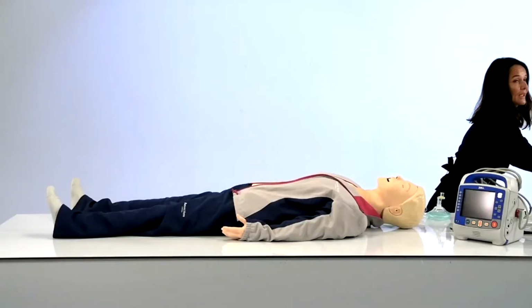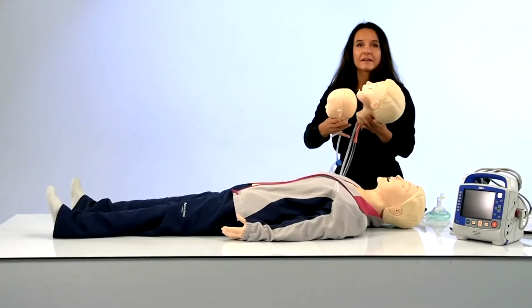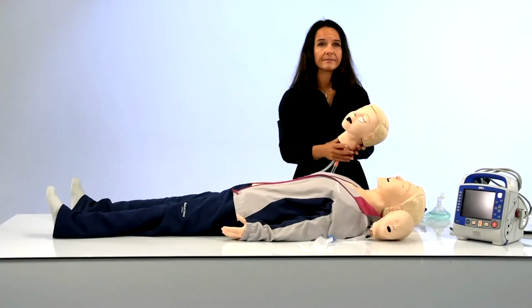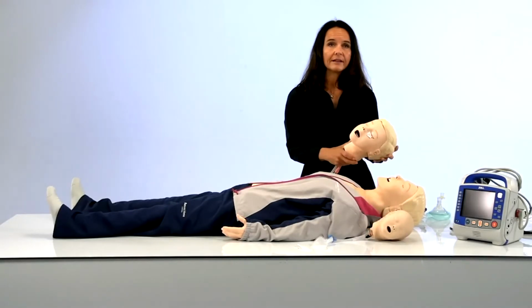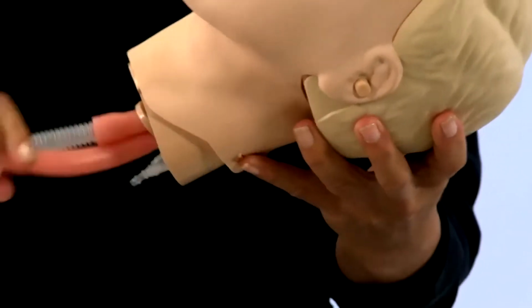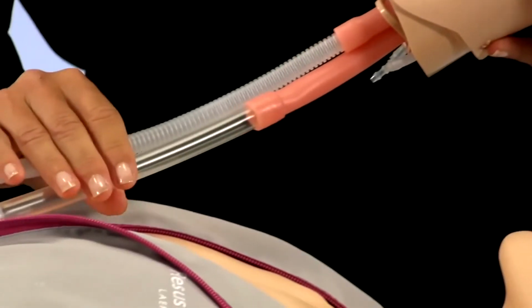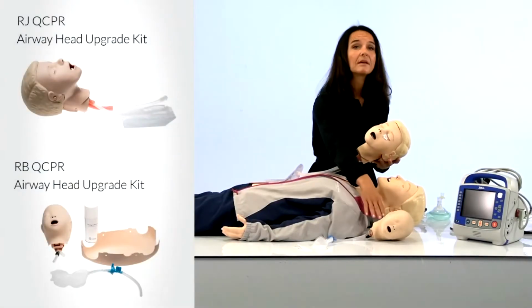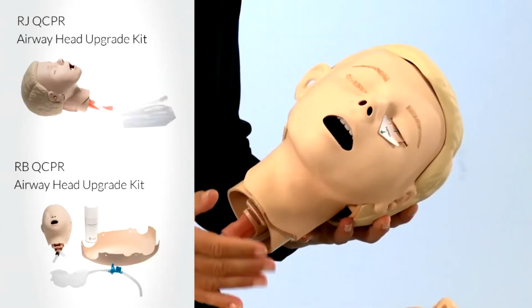In the spirit of this webinar, I want to introduce what's new. You might be delighted to hear that we now have airway heads for Resusci Junior and Resusci Baby. These airway heads follow the same principle as Resusci Anne. They are primarily designed for using supraglottic devices with no anatomy past the vocal cords. If you have an existing Resusci Junior or a Resusci Baby, you can add this head as an upgrade.